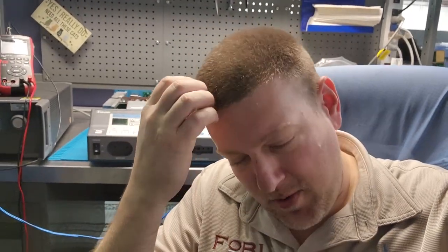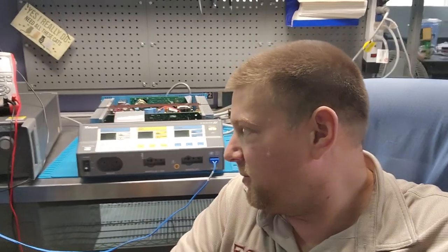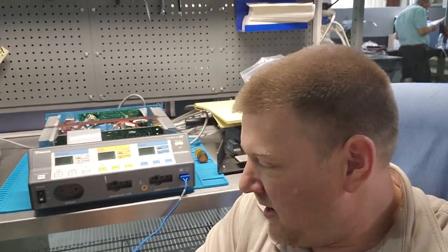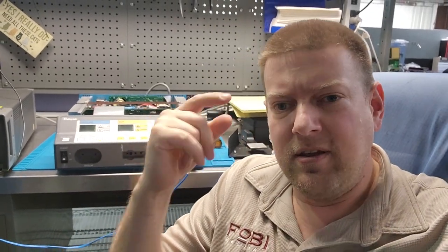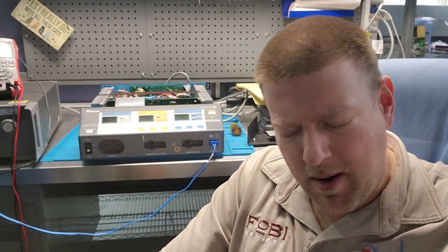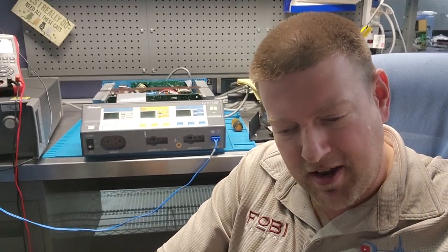Hey everyone, welcome back. So in my own ignorance, I've been sitting here trying to calibrate this absolute dinosaur and they gave me quite the run today. I just wanted to show you guys what I did and how to calibrate the REM on these guys properly first time. I know I did a whole other video on calibrating REM.